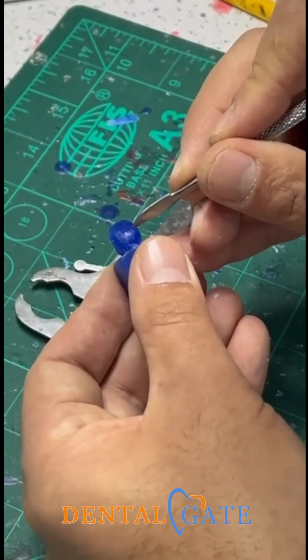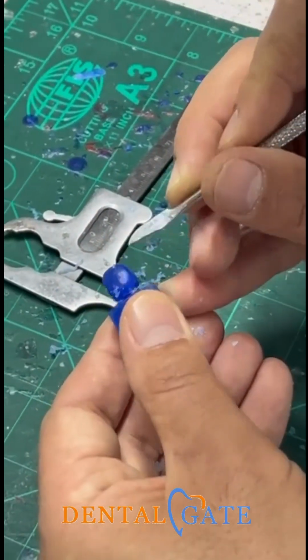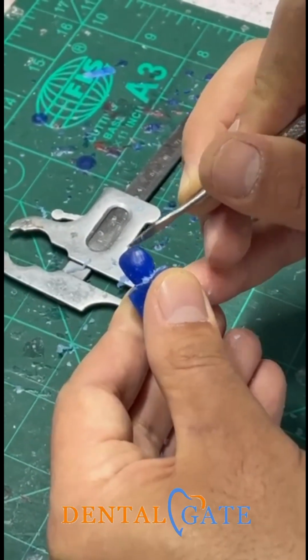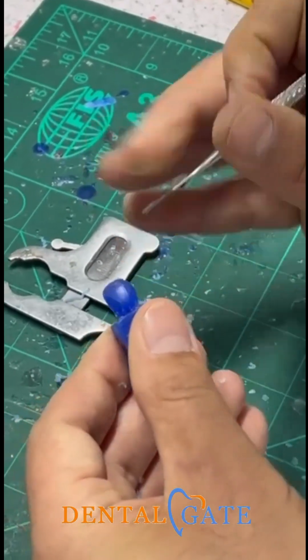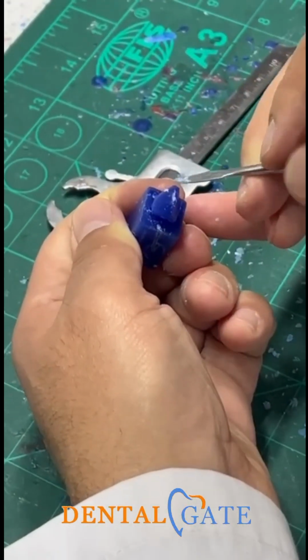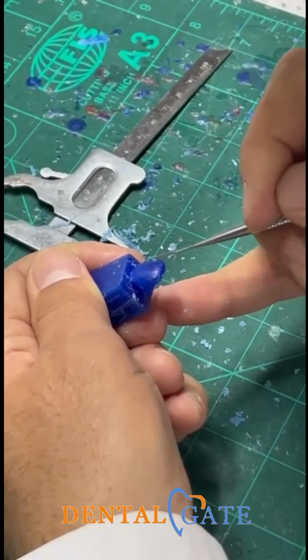So for my correct proportion, I have the maximum coverage here because in the cervical third I had a measurement here. So I need to preserve this curvature. In the other area, I will make a roundation according to the principle of the lateral. So this is the shape of the lateral. You can evaluate the lateral from the top. You can see we had a roundation here.